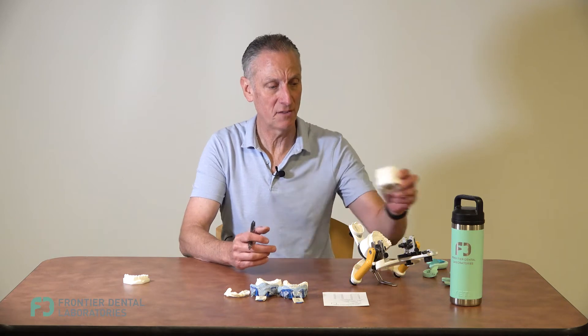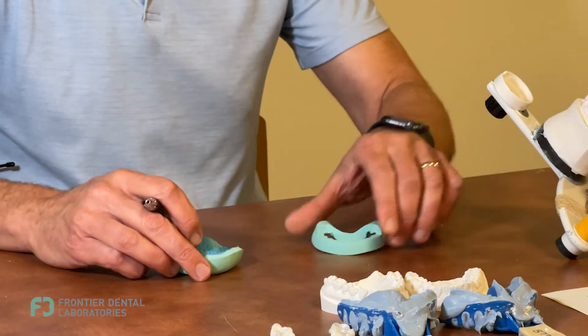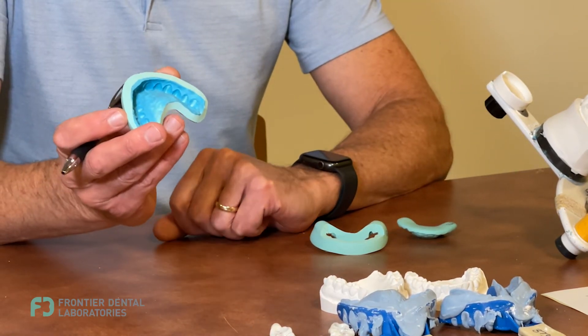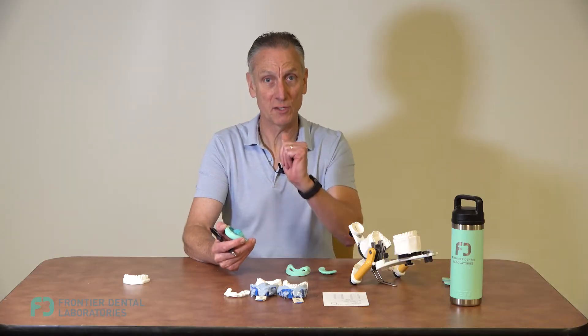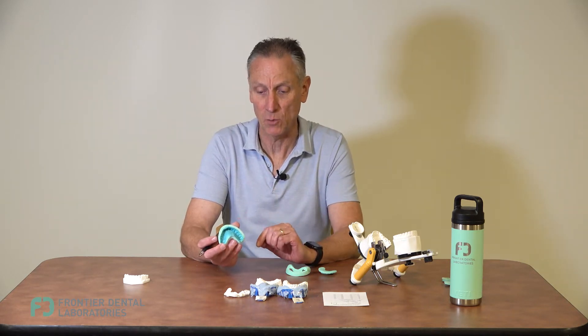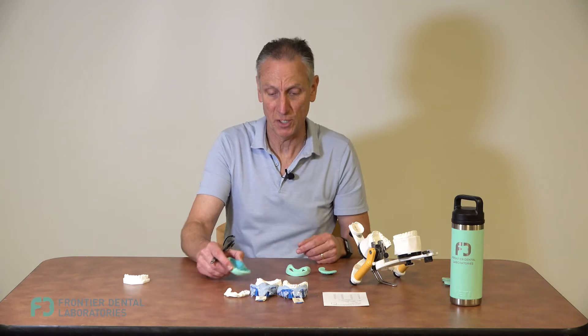We'll usually go off golden proportions for the design, and when you get your case back we'll provide you with a couple of tools. One of them is the temporary matrix, which is based off the diagnostic wax-up. You'll use it to transfer the diagnostic wax-up to the mouth — this is usually the best 'aha' moment of the whole appointment, the first time the patient sees what it looks like. We re-lined it with a light wash and a heavy putty so it's very rigid and doesn't distort as you put it in.